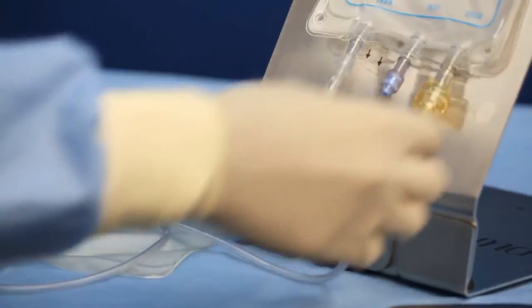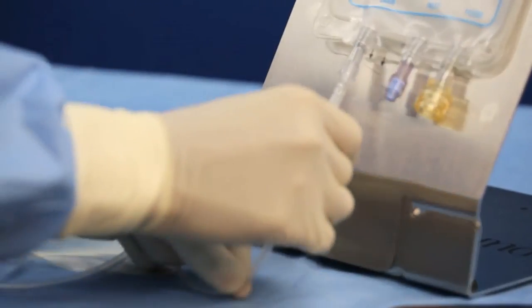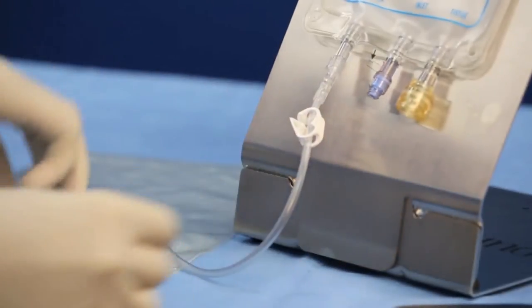Ensure that the clamp to the drain line is positioned near the PureGraft and that it is in the open configuration. Place the drain bag below the level of the PureGraft.